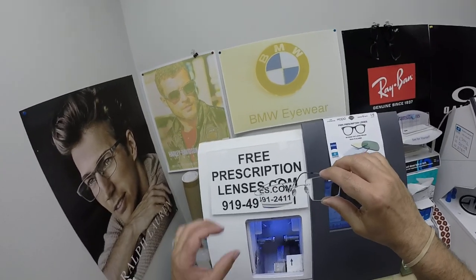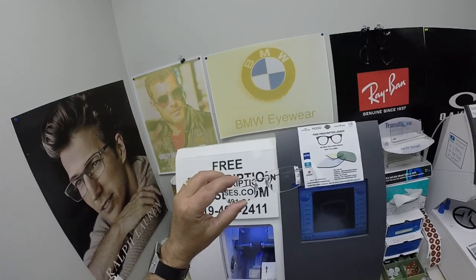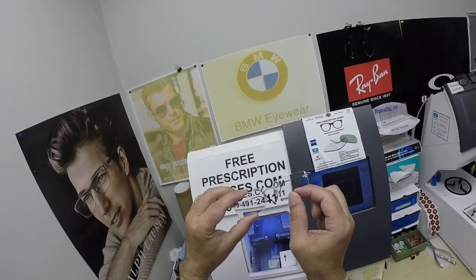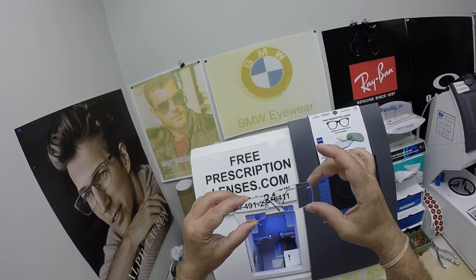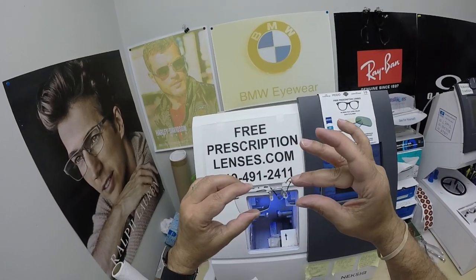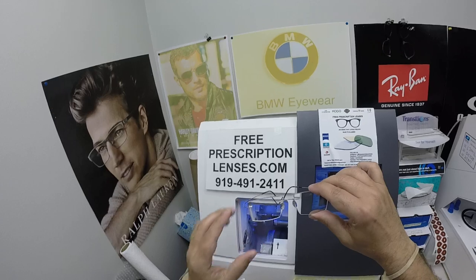He got shape CL — I'm trying to think of something that starts with Colorado Love — and the 54 eye size. The nice thing about Silhouettes is I can customize these to no end. I can make the lens wider or more narrow. When there's no frame going around there, I can modify it here. I cut all the lenses here. I can make it deeper or more narrow. I can expand the size in either direction, both vertically and horizontally.